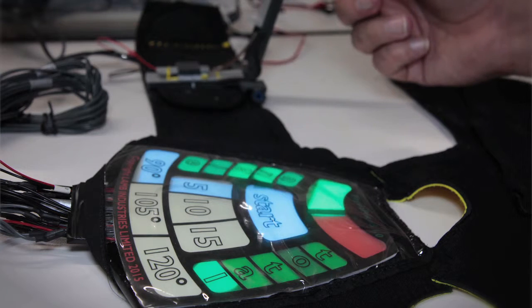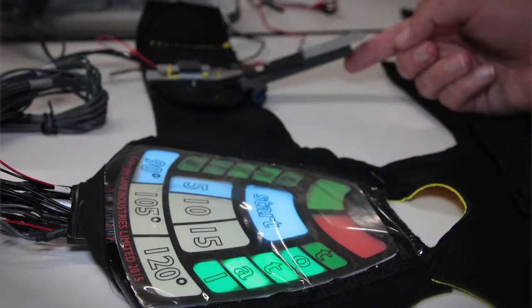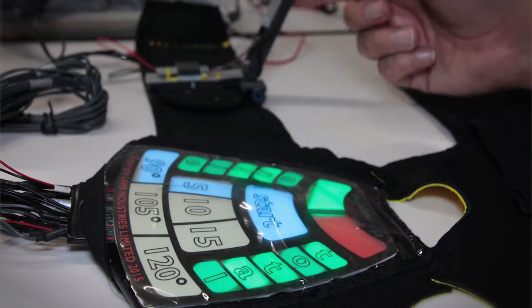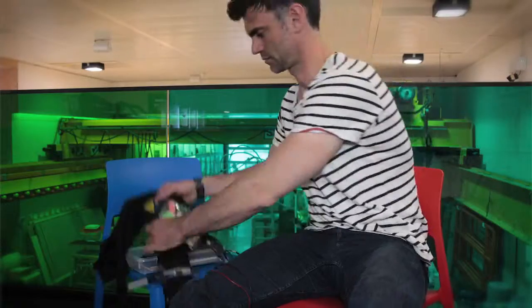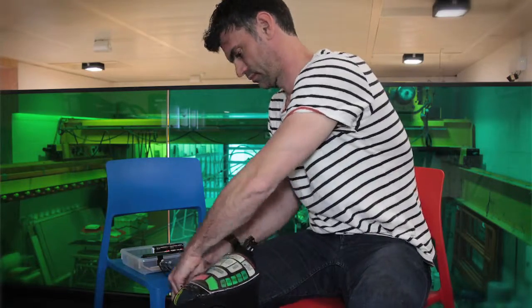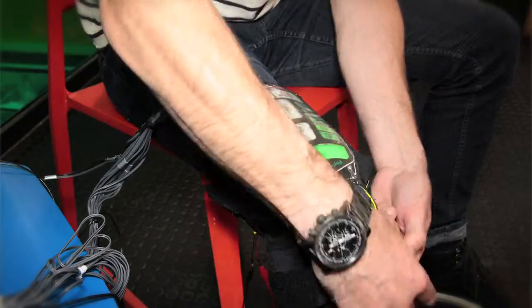The reason the LTM material is really good is because it's very thin and flexible. Because it has the touch sensitivity, it can act as a switch and record settings you've been advised by the health professional. It also has a very bright light so you can concentrate on doing the exercise properly.